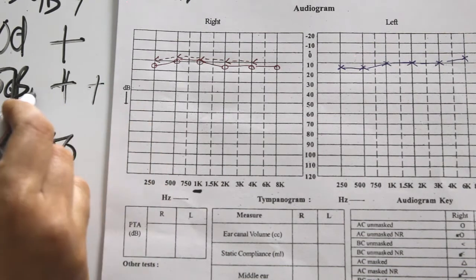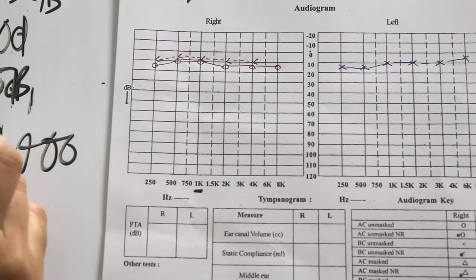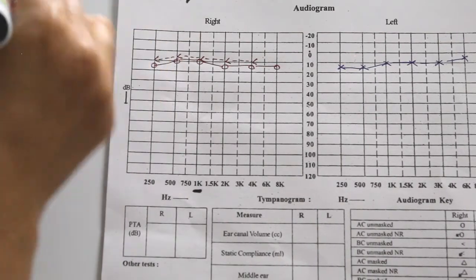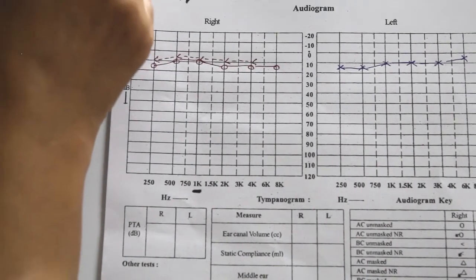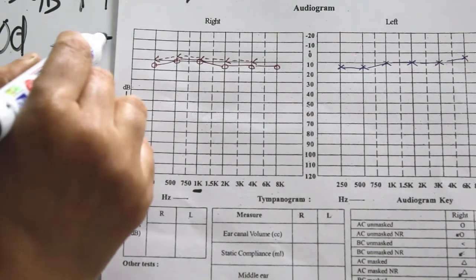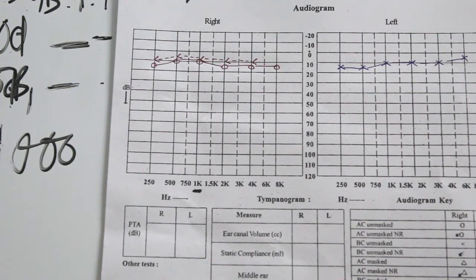At a particular tone level, if the patient responds 50% of the time, that is taken as the point of hearing and marked on the graph. For example: at 5 dB the patient says no, at 10 dB says no, at 15 dB says yes, at 20 dB says yes, reduce to 15 dB says yes, reduce to 10 dB says no — then 15 dB hearing loss is recorded. That is how you plot the graph.